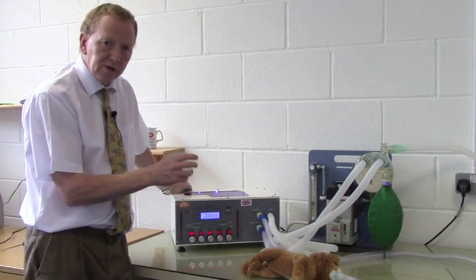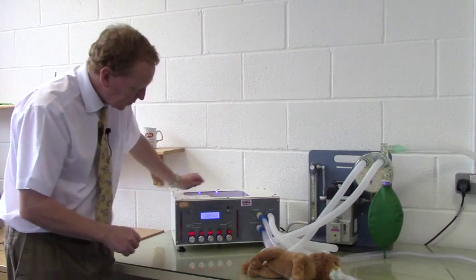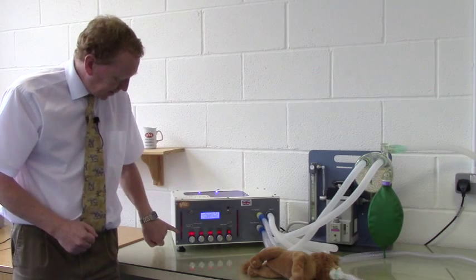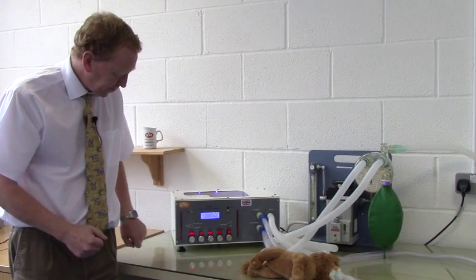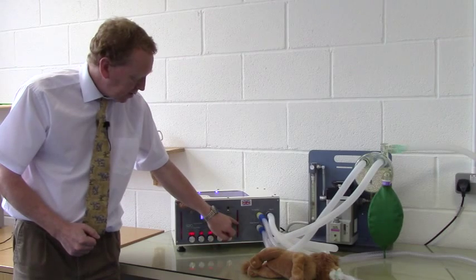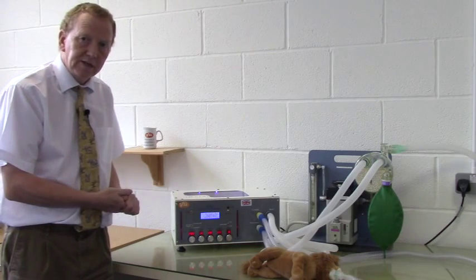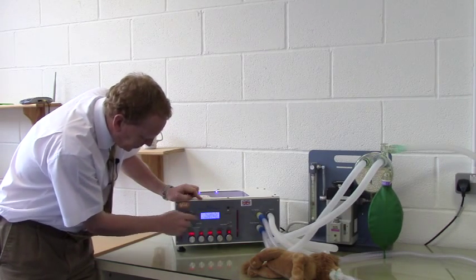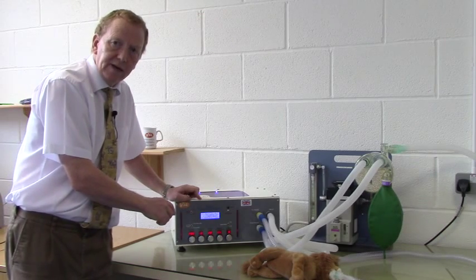The ventilator is delivering 200 mils in one second, and you'll see Leo's chest rising during the inspiratory phase. You'll also see here the airway pressure in the inspiratory circuit and the expiratory circuit rising and falling in the inspiratory phase. The scale here is a guidance only, and it can be seen that it's going to just over 15 to 16 notches on this graph. For accuracy, the actual pressure is constantly logged and shown on the screen on the line AP equals, and here we can see that our maximum airway pressure is getting to 18 centimetres.